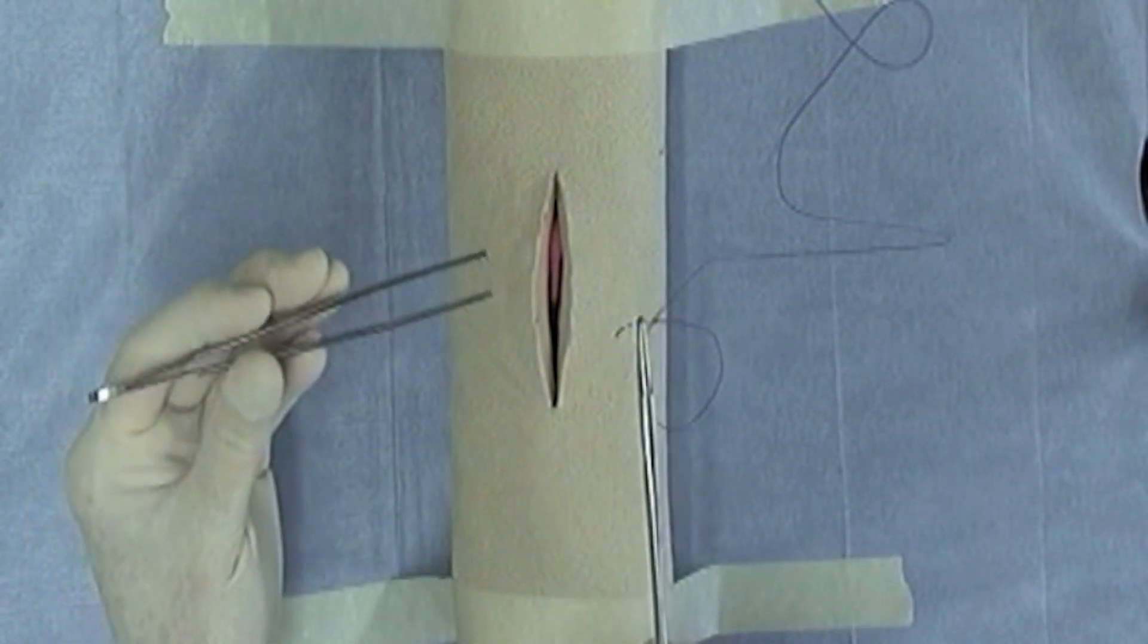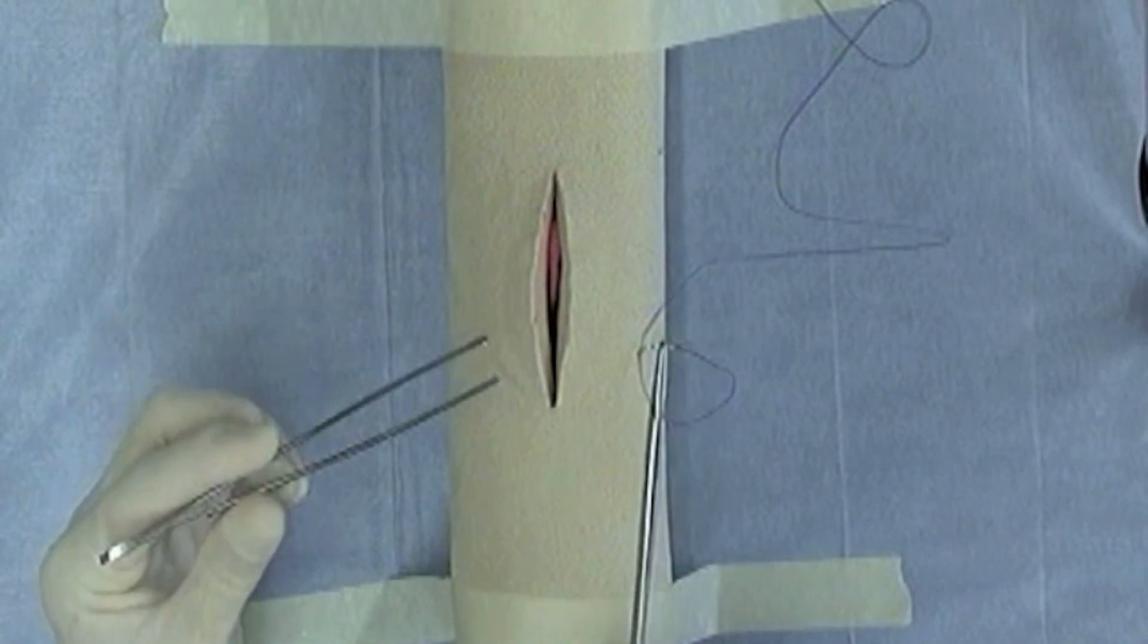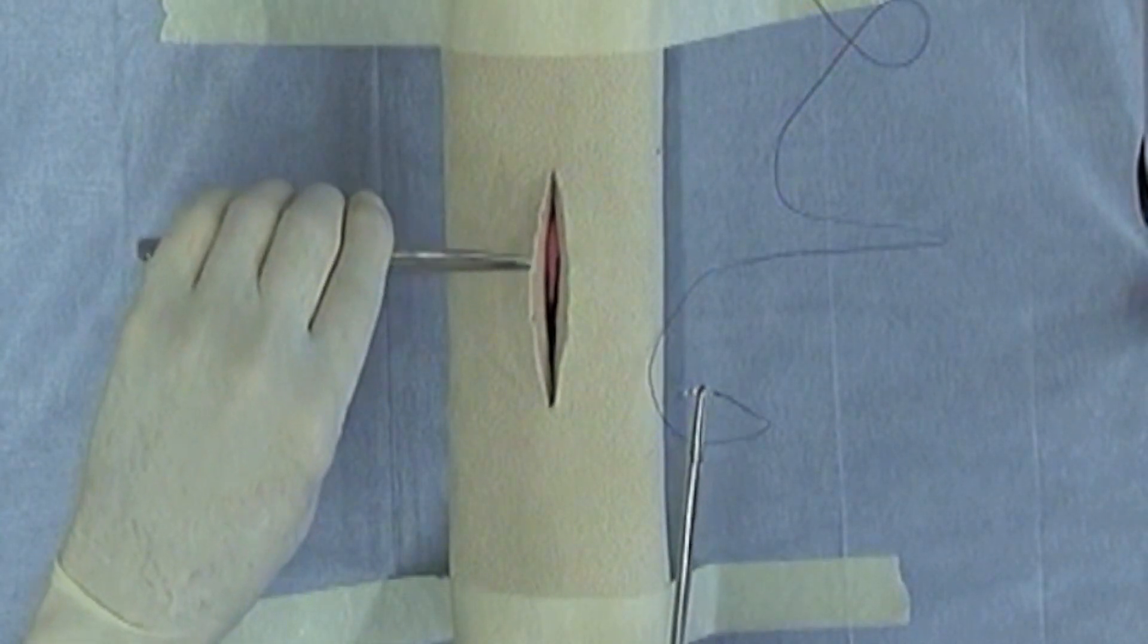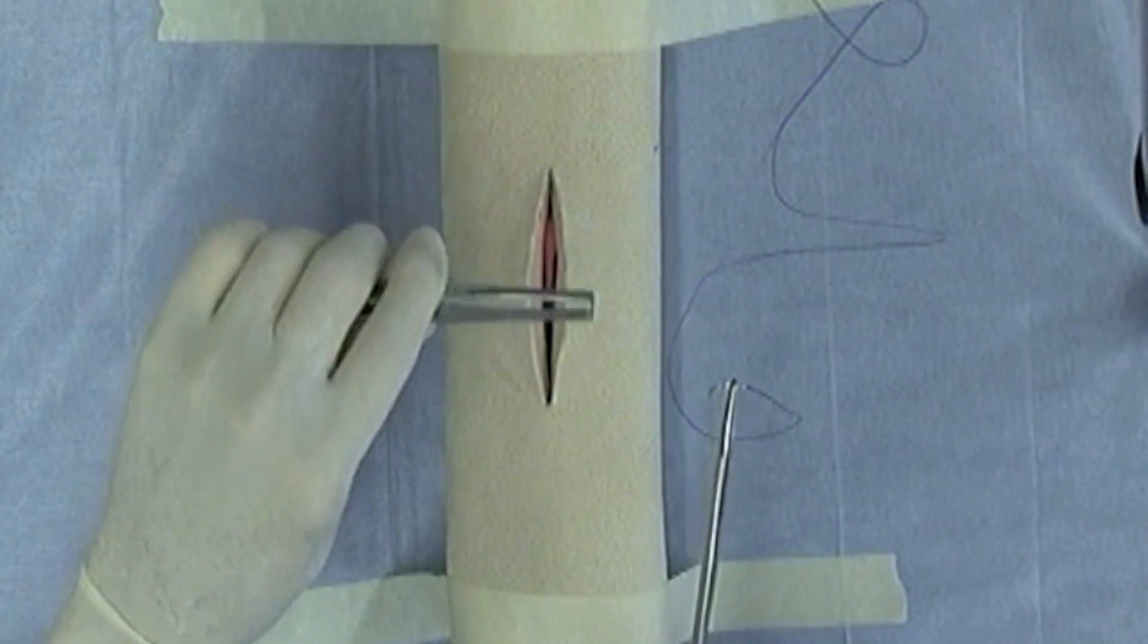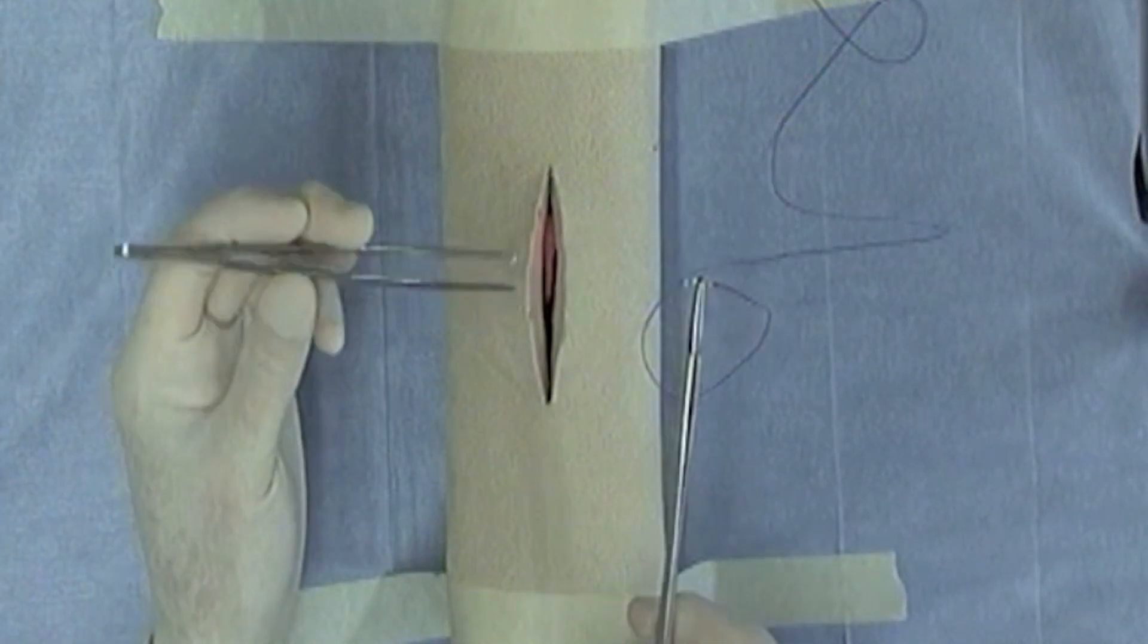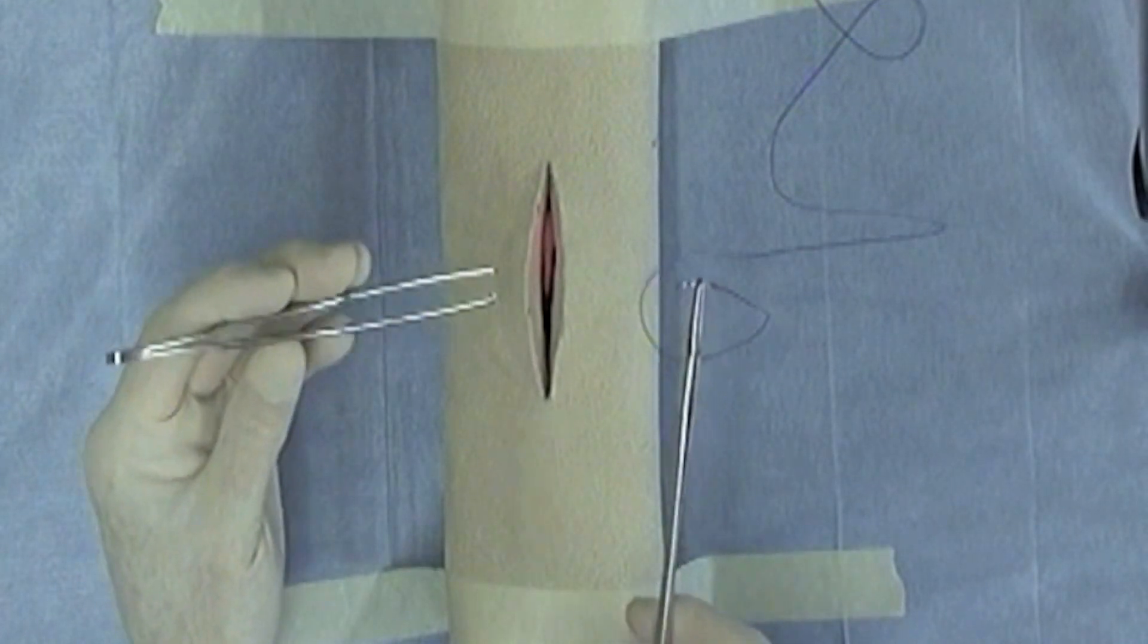Now I'm using the thumb forceps in the proper manner here. Many of you may have a tendency to use them in the improper manner, which is such as you would use a fork. So what you want to do is hold the thumb forceps in a manner such as you would use a pencil.